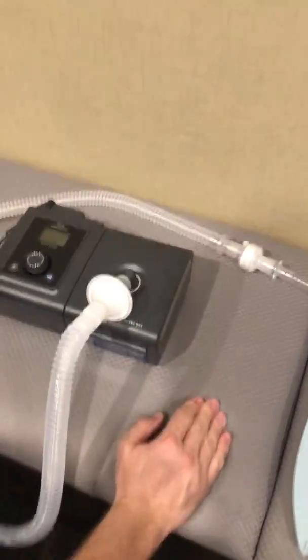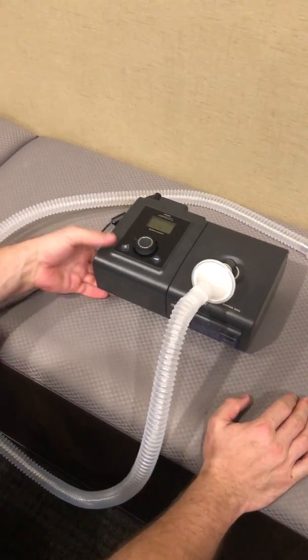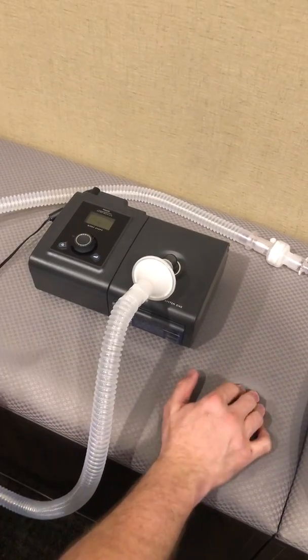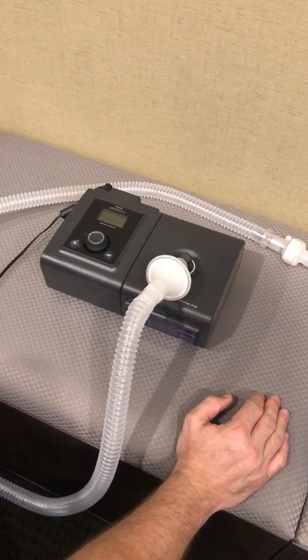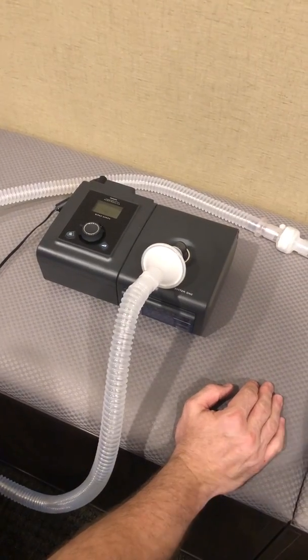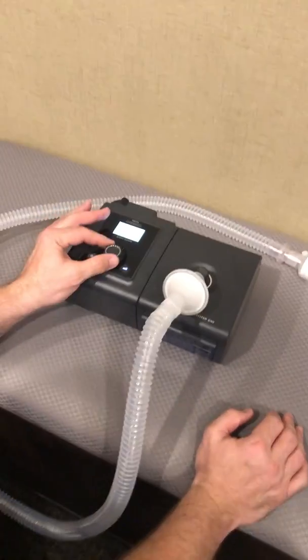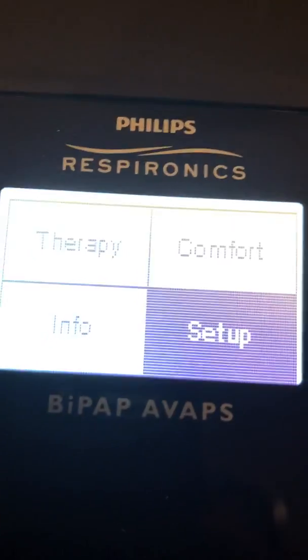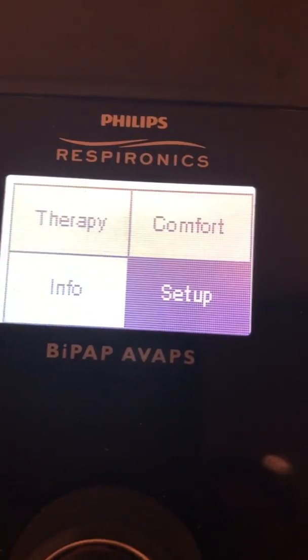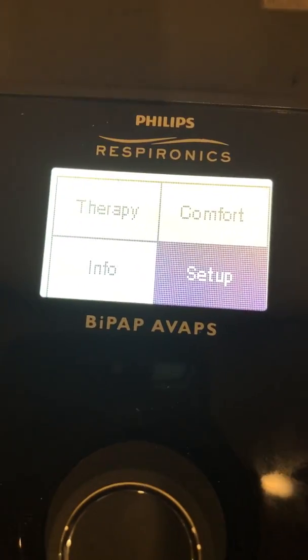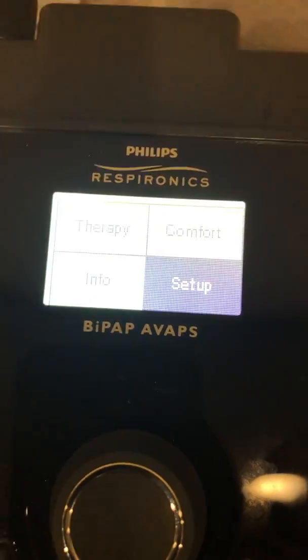As you can see, the machine has been set, it is running, and it is ventilating. We are achieving a tidal volume of around 400 at this time, and that will increase — it's a little bit slower than the norm, but it will increase to ventilate the patient. I'm going to hit the main button to get back to the main menu. To turn it off, I'm going to push and hold the main button — it'll beep once and shut the system down. I did that so we can see how to turn it off, and also so I can disassemble the circuit and show you piece by piece what we have.